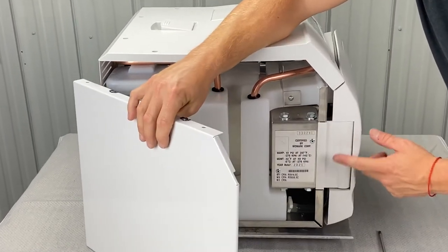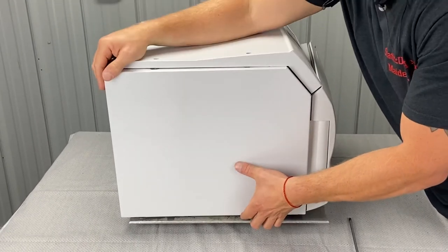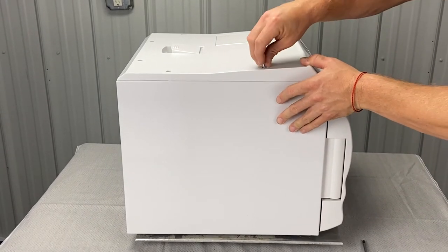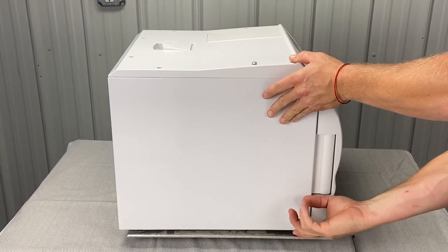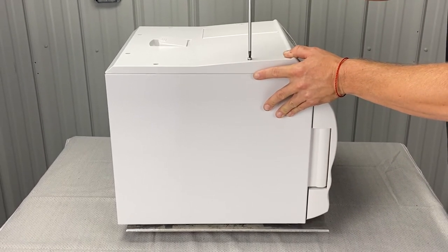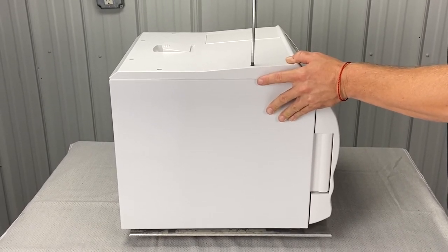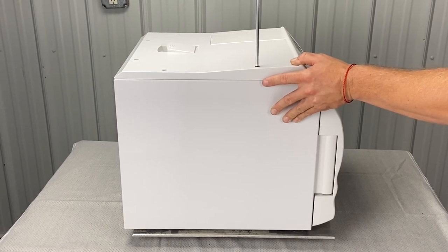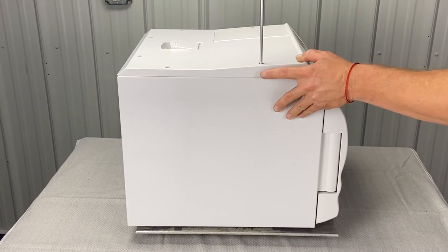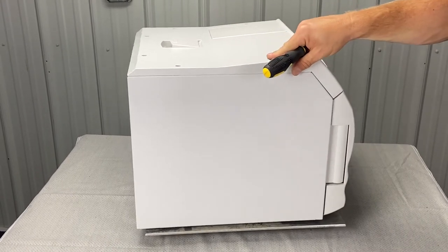That's good, that's in good. Now when I put this in, I won't run into that. Get it up here like so — look at that, like a glove. Just screw one screw in. You want to make sure that's good, because anything not installed properly will catch on the front door, and then we run the risk of damage there. I'm holding this in place, holding it upwards so those interlocking tabs stay hooked up, and then I'm screwing this Phillips down nice and snug. Don't over-torque it — these are plastic underneath here, they crack all the time.